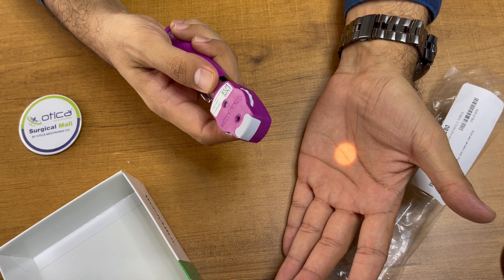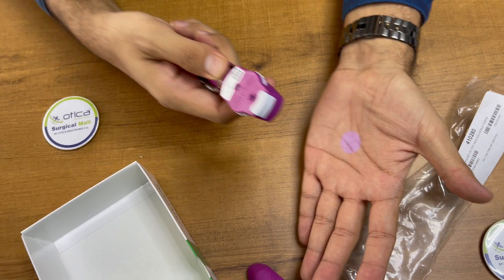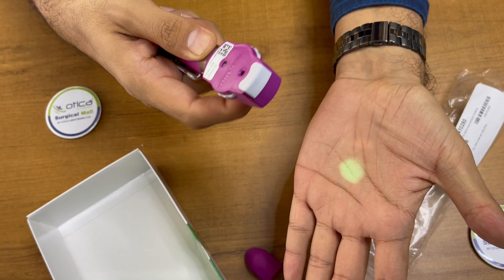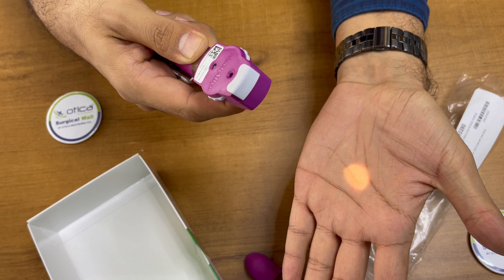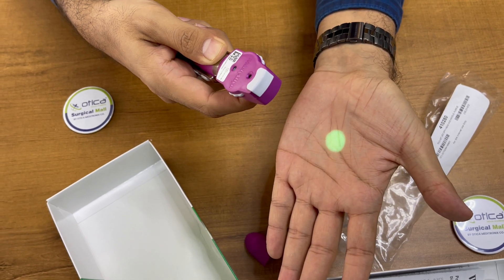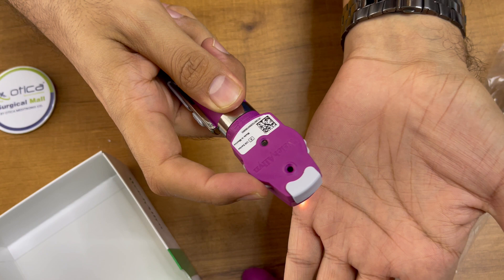This device has three types of filters. You can see — this is a blue filter. There is too much surrounding light in my area, so there is a streak. There is a green filter, and small spot, medium spot, large spot, spot with grid, blue filter grid, and green filter. You also have different types of lens arrangements.